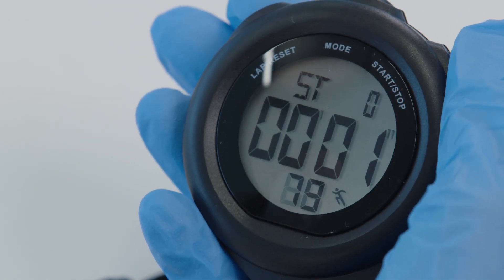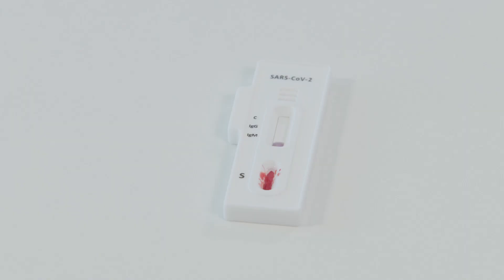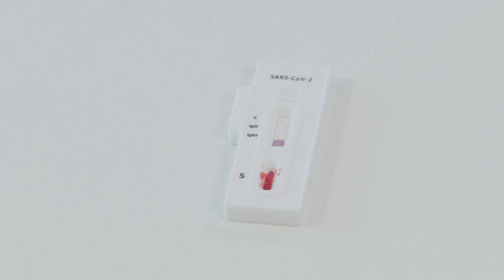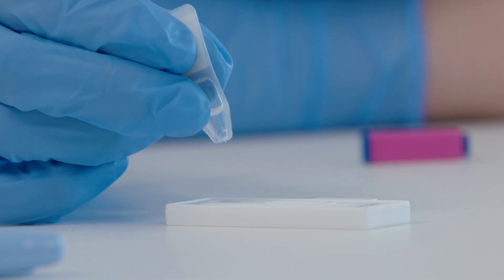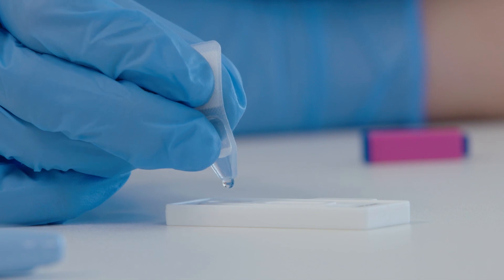After 30 seconds, a red-pink colour front will form and move across the strip in the evaluation window. If that does not occur, add another drop of buffer solution to the specimen window.